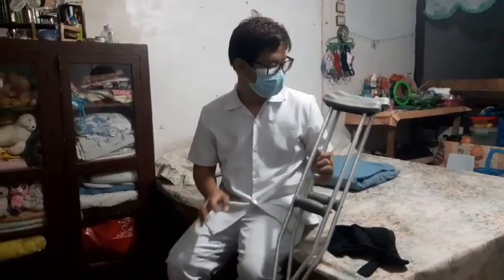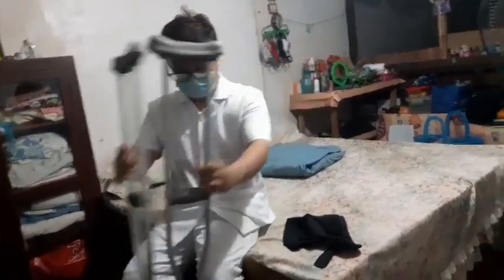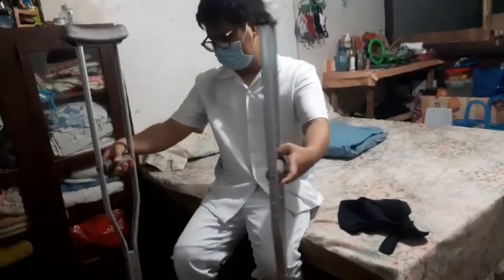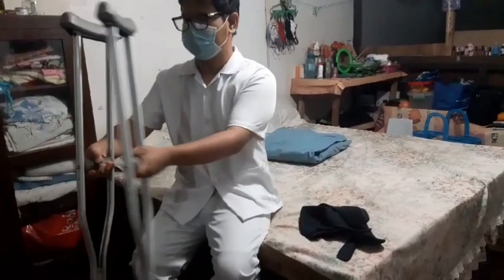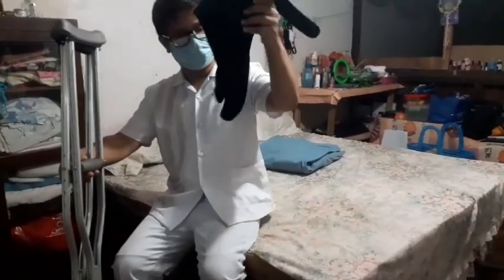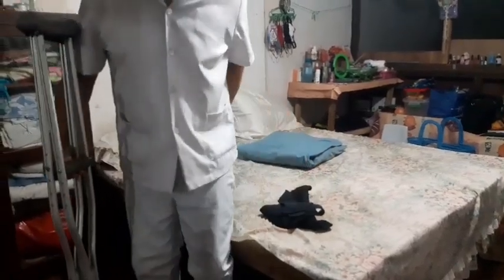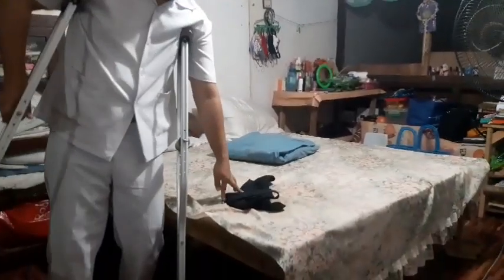The materials needed for the procedure: you need appropriate crutches, making sure there is a rubber tip to avoid pain, and also check the tip. Next, we have the safety belt or gait belt, which is optional if the client can move on their own. Then you have your shoes, and comfortable clothes which you are going to use in walking.